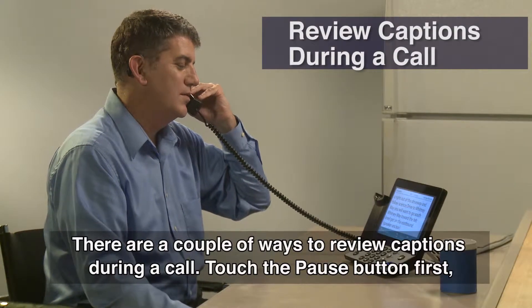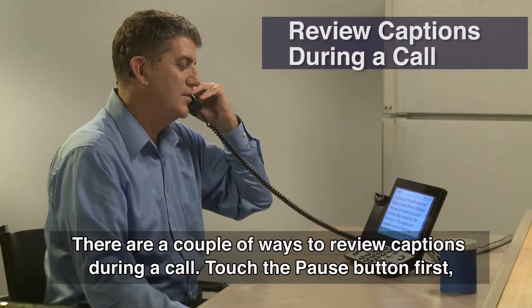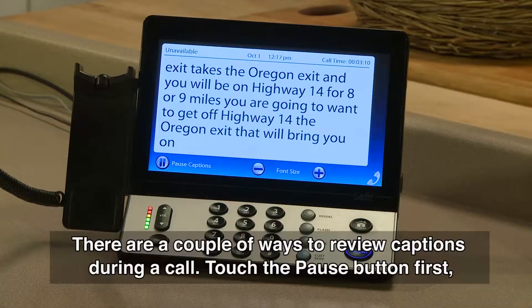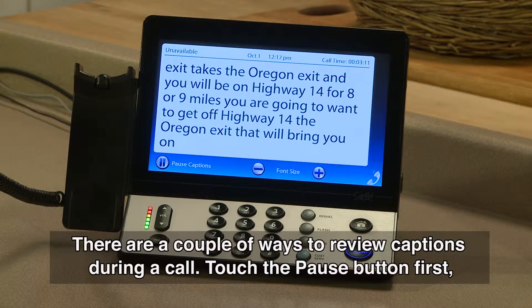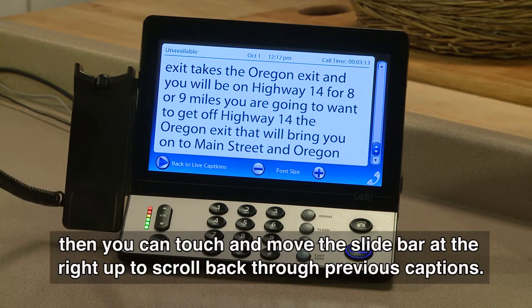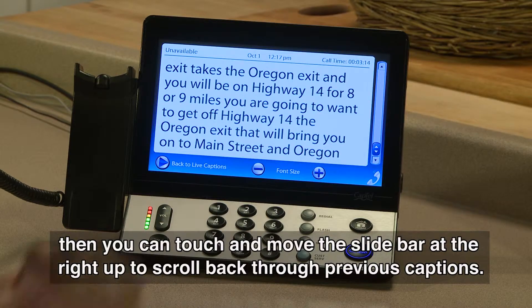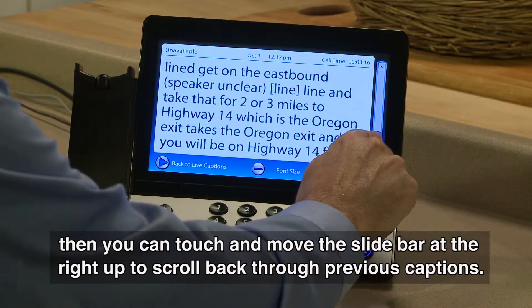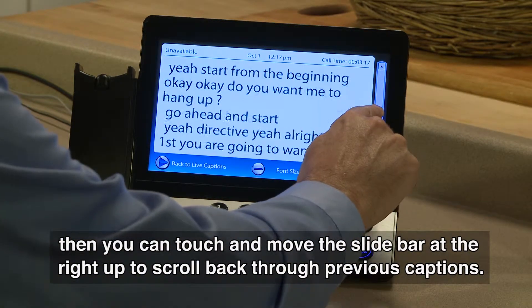There are a couple of ways to review captions during a call. Touch the pause button first. Then you can touch and move the slide bar at the right up to scroll back through previous captions.